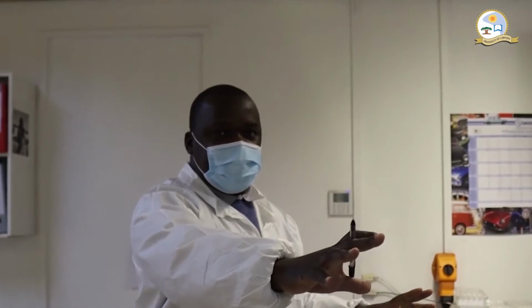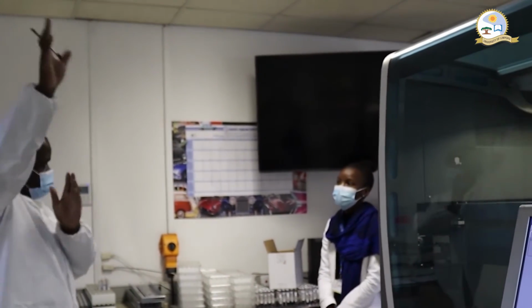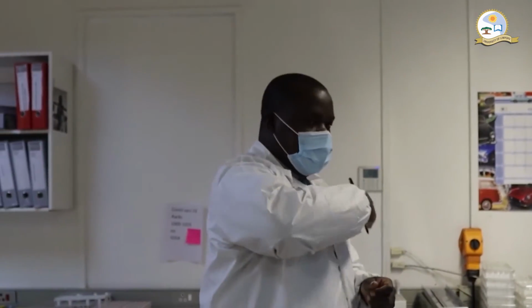It's a pre-analytic system. That's where we load, and then it will be kept and channeled through the tunnel into the machine. So people are not directly involved. Really, when it gets in here, it's mostly the same.